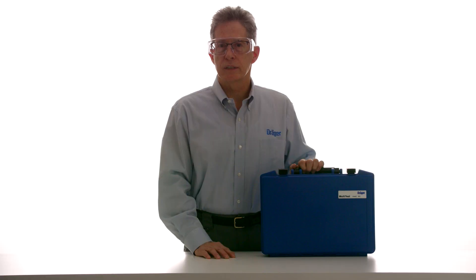If the measurement results exceed the standards or established internal limits, please consult your supervisor. If you have any questions about the Drager Aerotest Multitest Med International, contact the Drager Technical Support Team. Thank you.